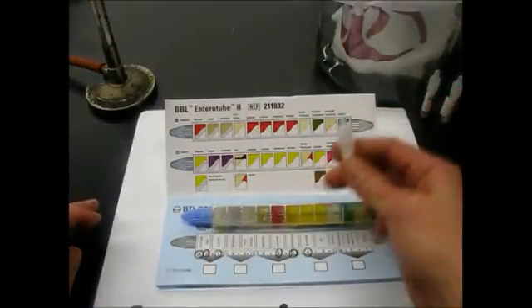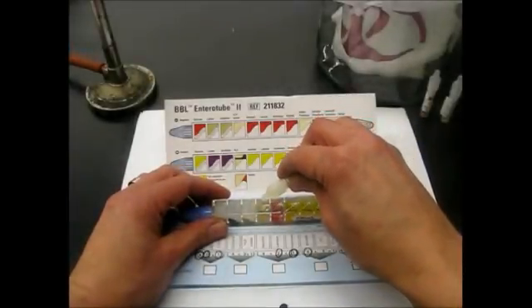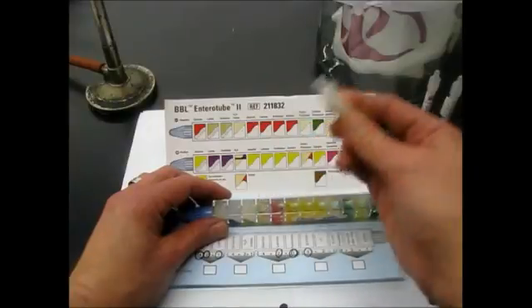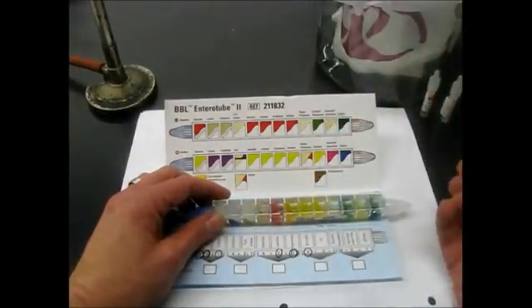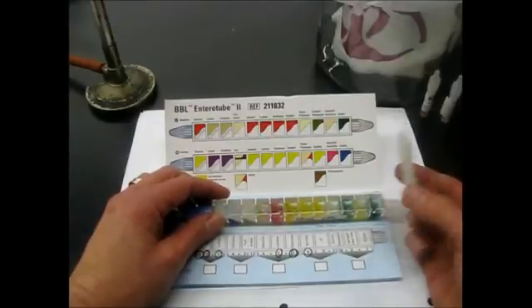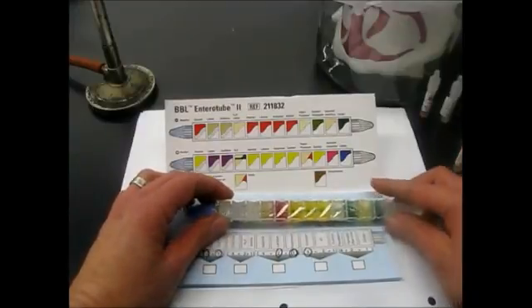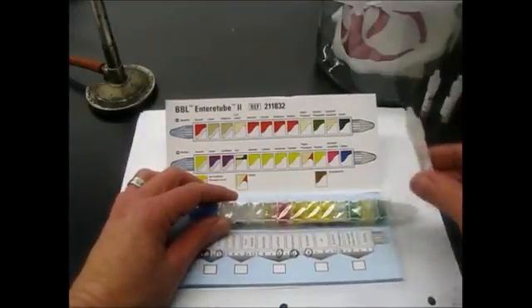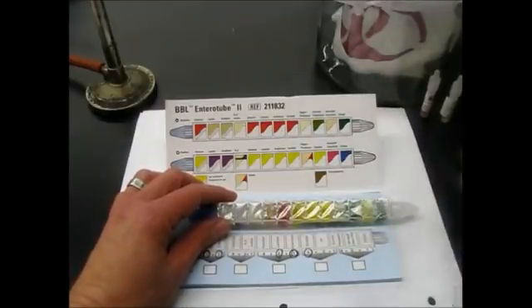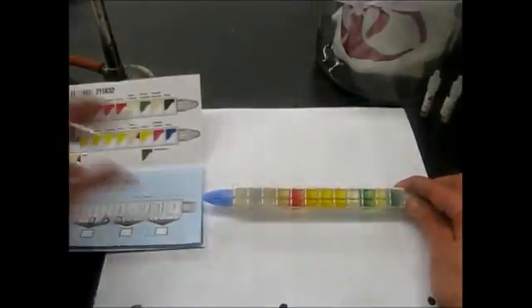You just squeeze it and it will crush that, and then you're able to put a couple drops in the compartment too. Then you can take this and let another group at your benchtop use this. Actually, two or three groups could probably use it, and I would encourage you to do that to conserve materials. And then once this is completely empty, we can go ahead and just put it in the container where the pipettes go.